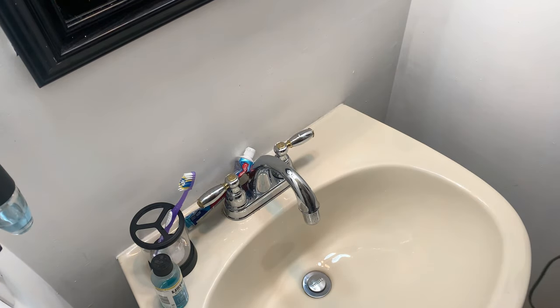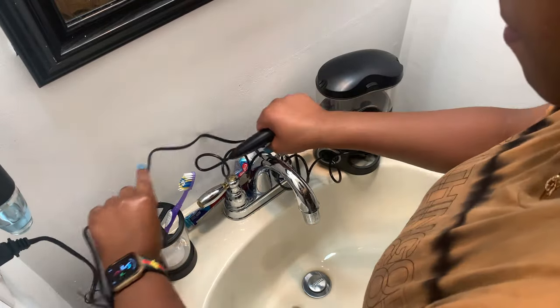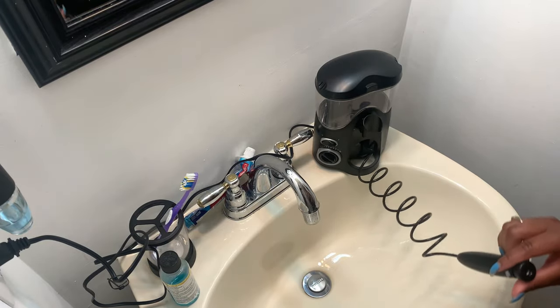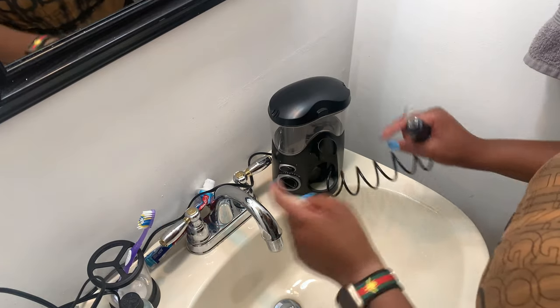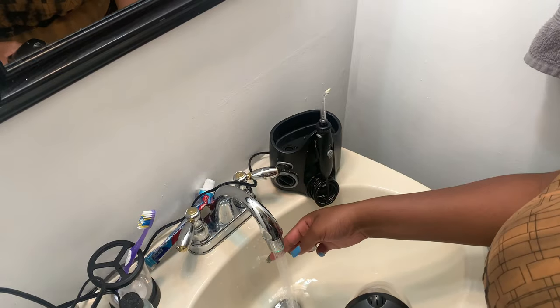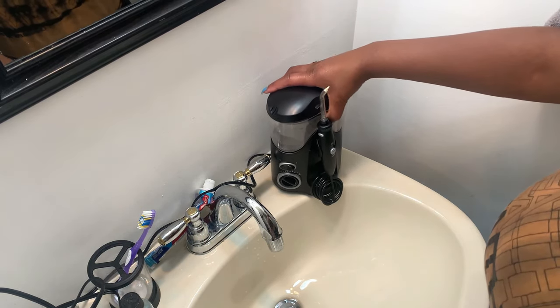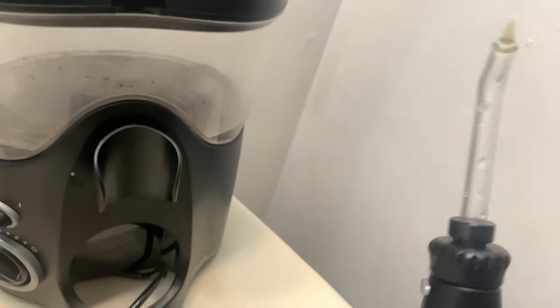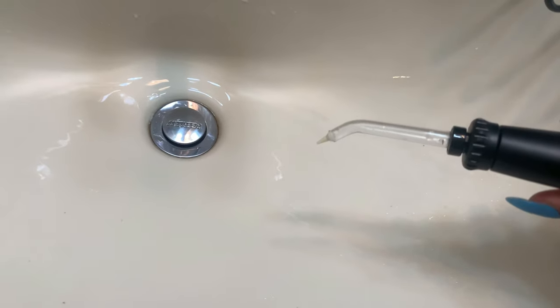I'm going to show you guys how to do this. Let me remove this one. You will put your device there with whatever cord you have. So this is the tip here and this is the pump — all you're going to do is push it in and you'll hear it click. That's all you do. Next I'm going to fill this up with warm water. My bathroom is really small, I'm just trying to get a good angle for you guys to see. I don't usually fill it up too much because I don't use all of it and I don't want the water sitting there going bad. For the first use they want you to prime it — basically all you do is turn the pump on, set your pressure settings to the lowest to get started, and then push the button. That gets all the warm water in so it's not going to be really cold on your teeth.